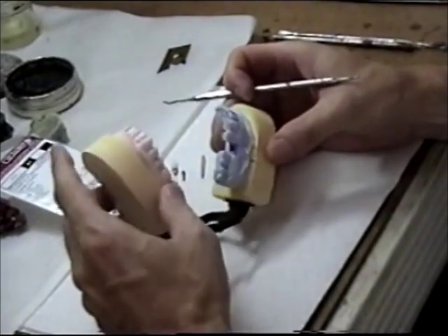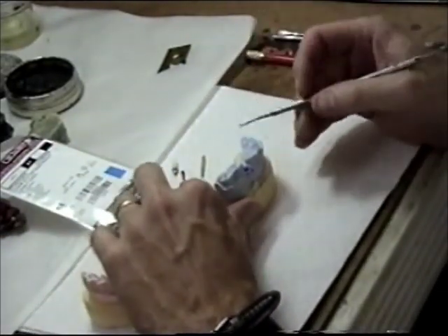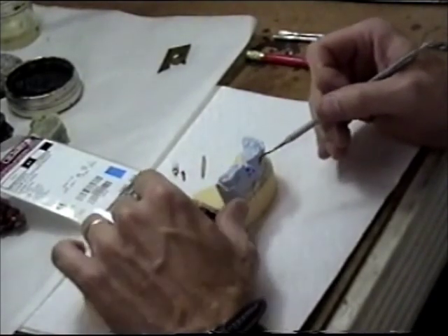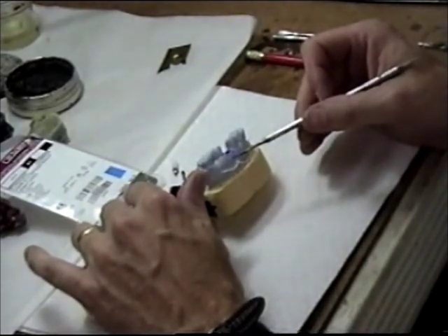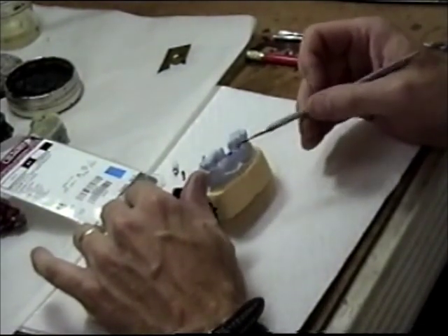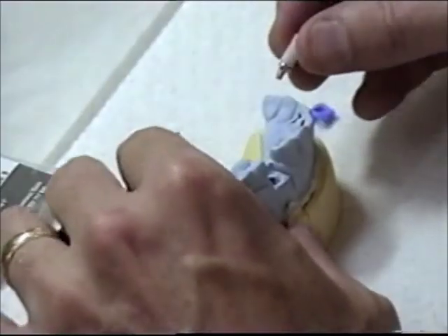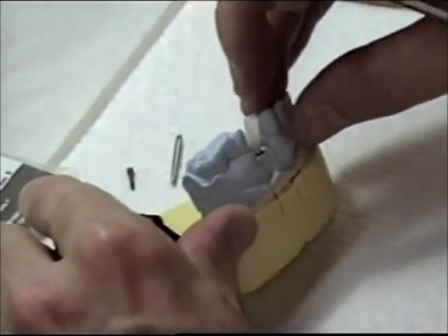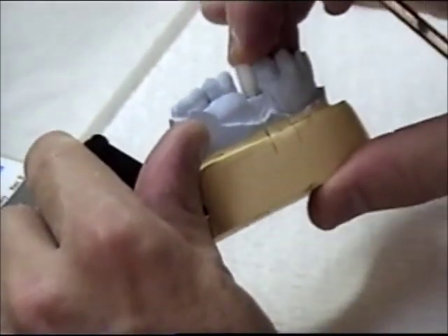I have my working model here. In the working model I poured an analog that is going to duplicate the implant that is in the mouth. The analog is in the die here. First thing I am going to do is I am going to put the cylinder in position — it will just snap in place there.